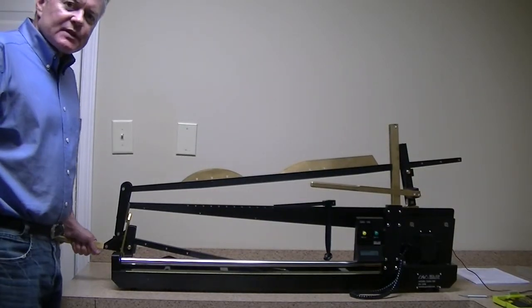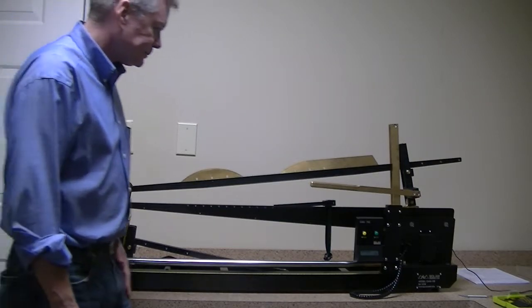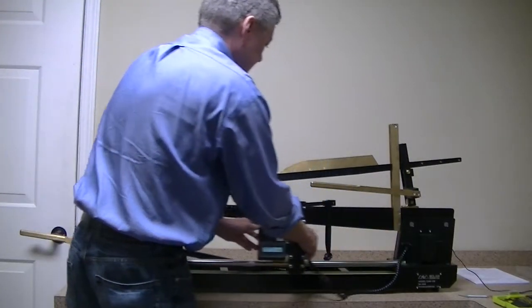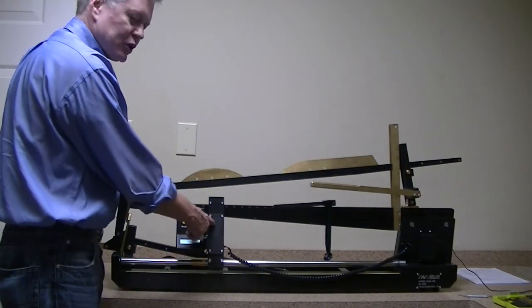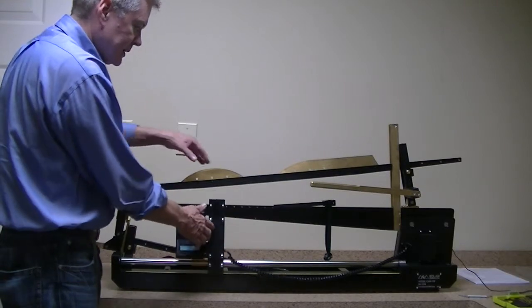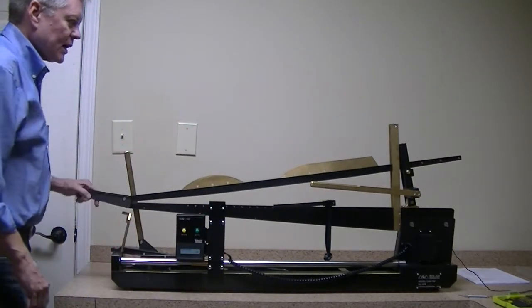The principle of how this tests compression is based upon this control head being able to measure the tension in the sidewall of the garment as it's stretched to size. So as you don the garment, it stretches to the length.